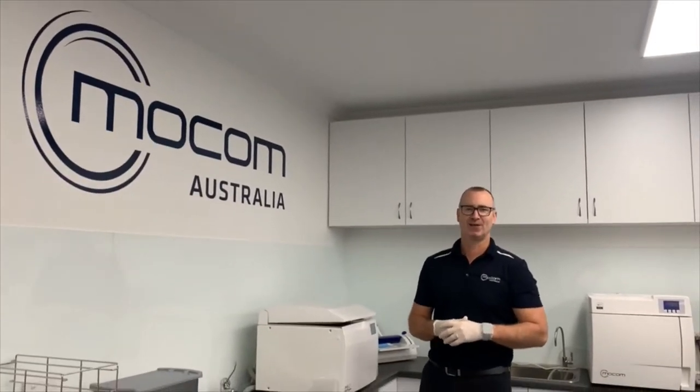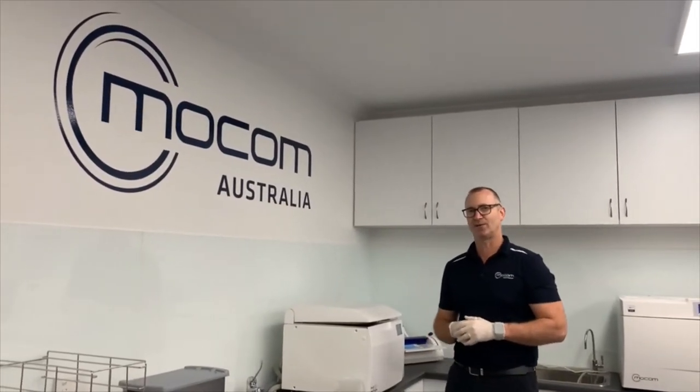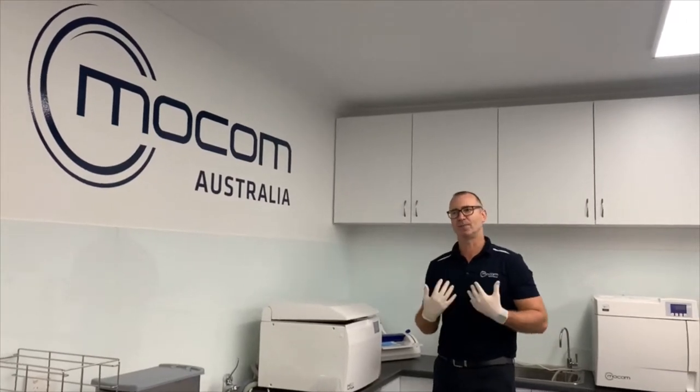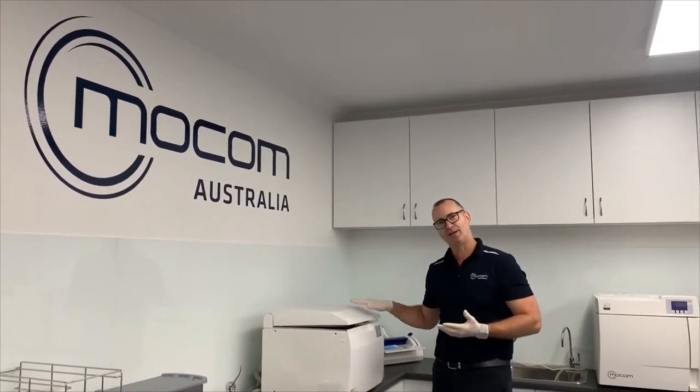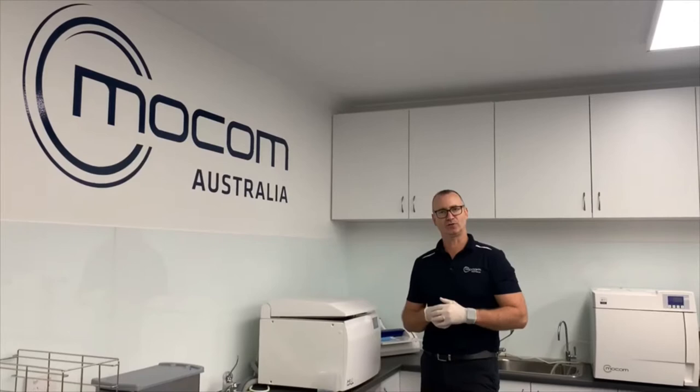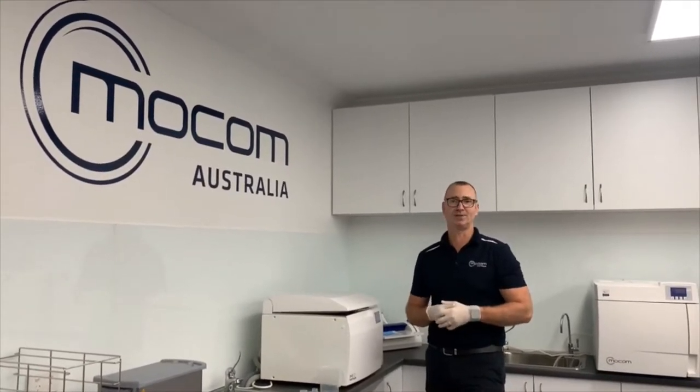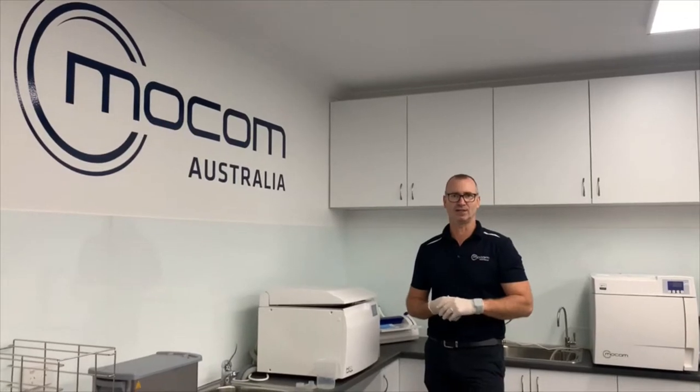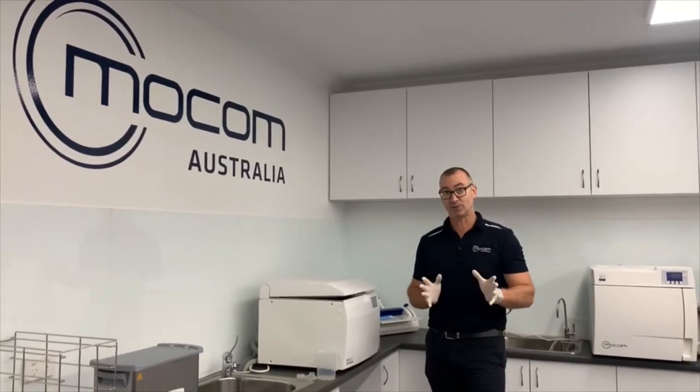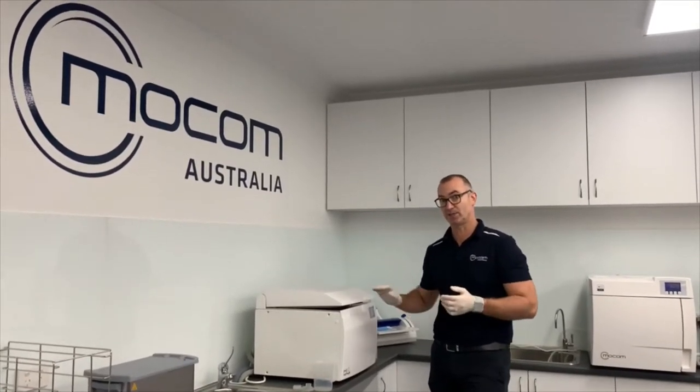Hello from MoCom Australia. We've been asked a few times now whether we can recommend things you can do to put the hybrid H10 Tethys washer, the ultrasonic washer disinfector, into mothball mode if you've got to shut your clinic down for a little while. There's a couple of things we can suggest. So let's run through them together.